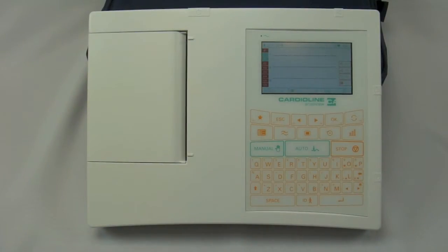Cardioline is pleased to announce the newly redesigned Cardioline AR1200 EKG series. This particular series of EKG machines prints on a six channel printout or half a sheet of paper.